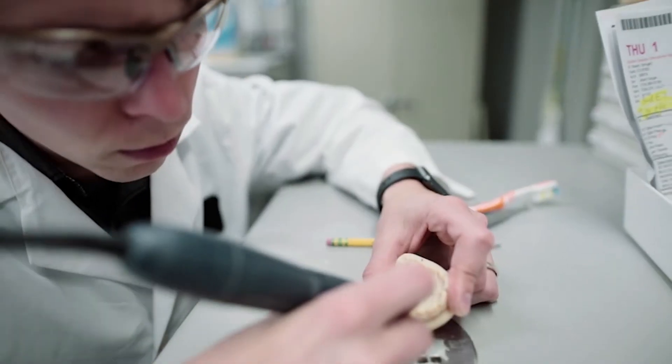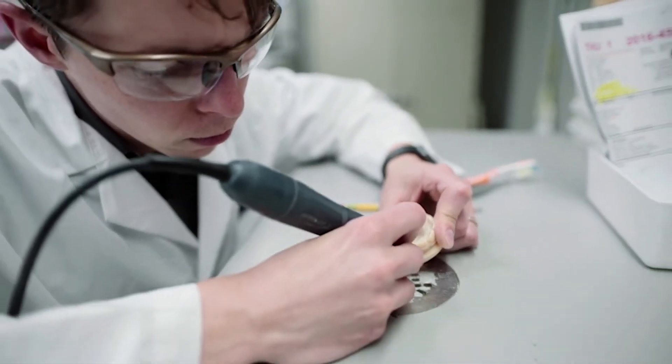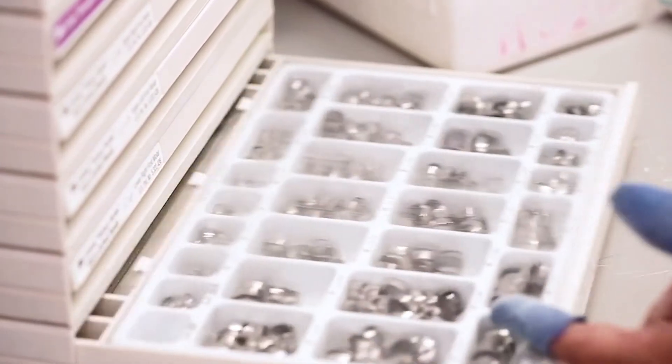We do all of our indirect banding right on the 3D model. It's all done by hand and because we do that, there's less turnaround time.